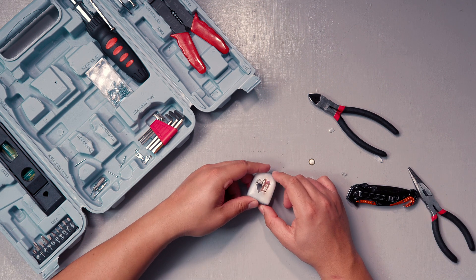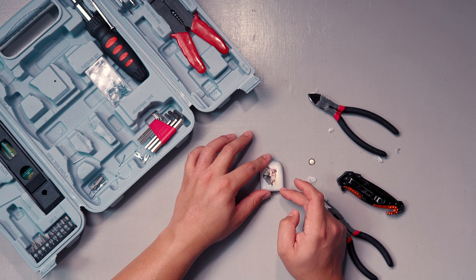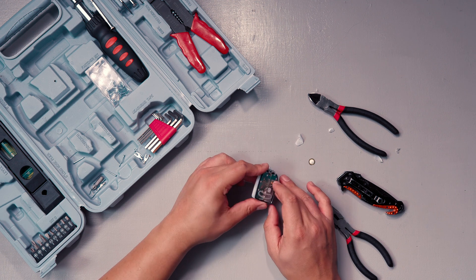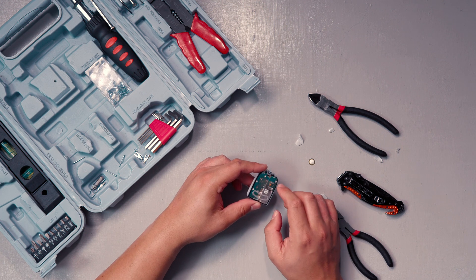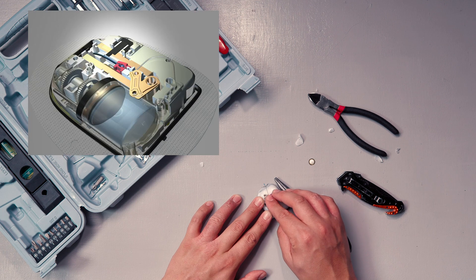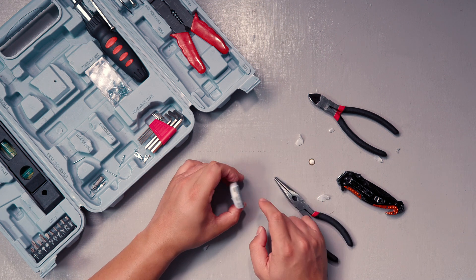So it rotates one tiny click at a time — you can hear it — and it pushes that back and forth. What we're looking at here is mostly just the mechanism piece. My guess is this part right here is actually the wireless unit, so it collects the data and sends it down through here — which makes sense because you've got these ports here. It probably sends it out through that to the other parts of the pod. And this is the needle — it comes out, shoots down, makes the hole, and comes back out.